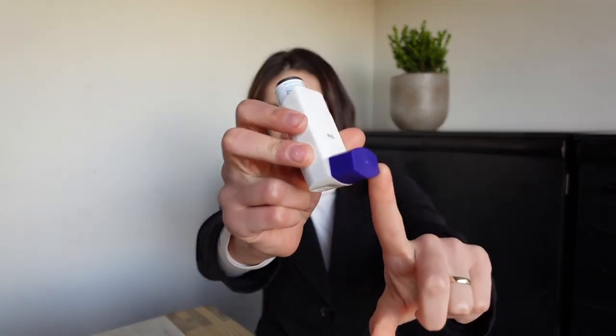The process of using an asthma pump is as follows. First you're going to remove the cap of your mouthpiece — here I'm removing the cap of my mouthpiece. Then you shake it gently, just a few times.